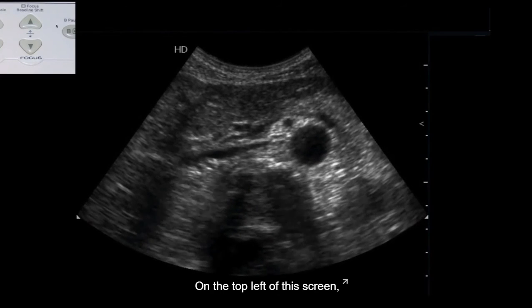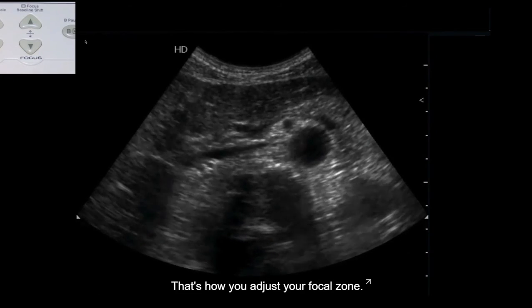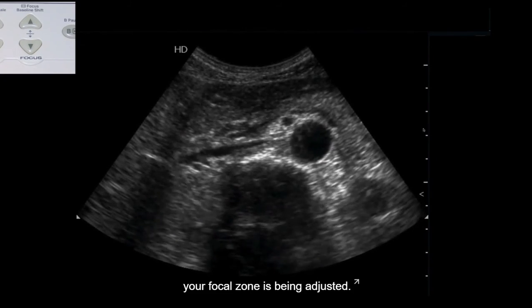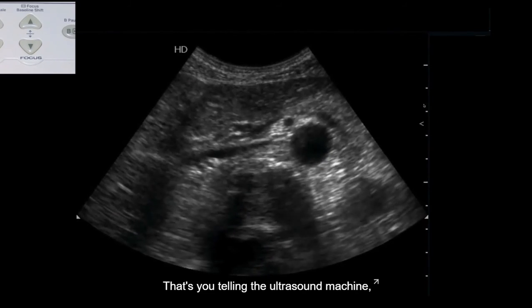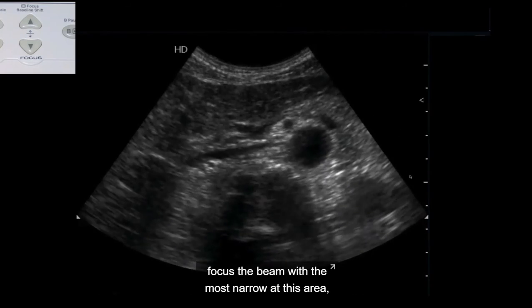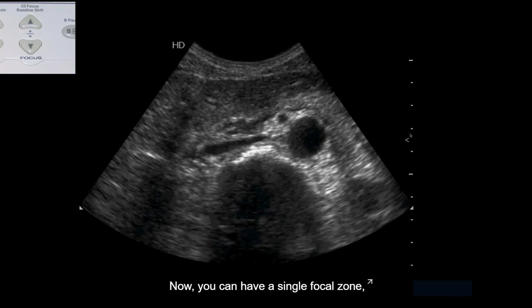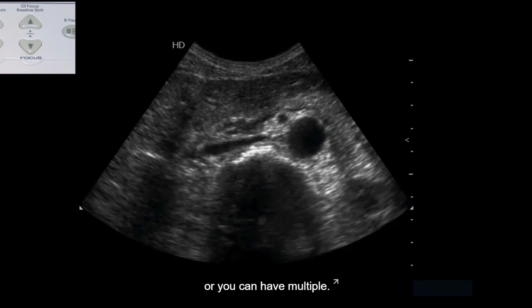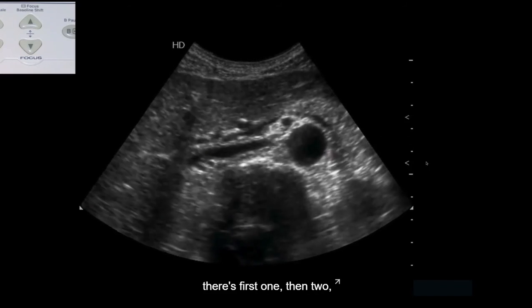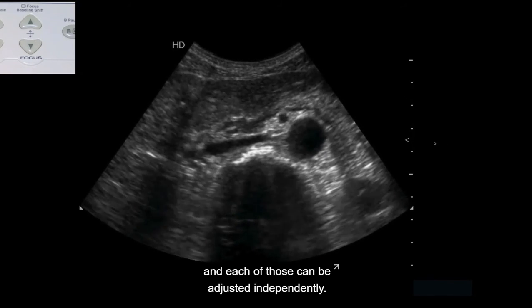Now, on the top left of this screen, you'll see your focal zone buttons up and down. That's how you adjust your focal zone. And you'll see on this video clip here that your focal zone is being adjusted. That's you telling the ultrasound machine, focus the beam width the most narrow at this area and thus improve my resolution at that area. Now, you can have a single focal zone or you can have multiple. In this video clip, you see that there's first 1, then 2, and then 3 focal zones. And each of those can be adjusted independently.